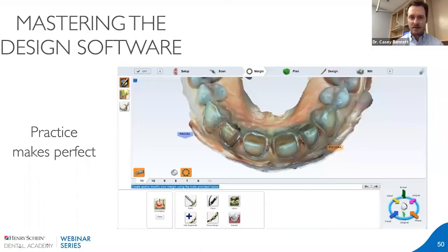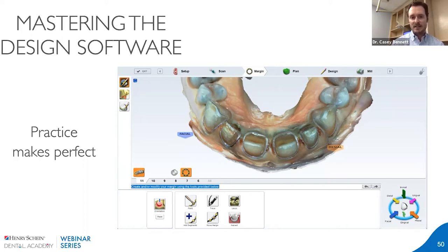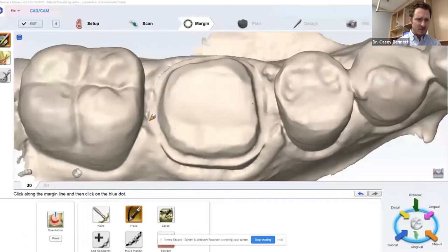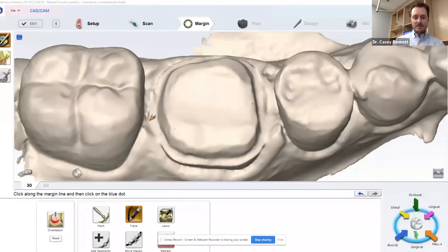Now that we're masters of scanning, let's move into the design aspect, because a lot of times dentists are worried about manipulating CAD software — they've never used it before, they're worried it will take too long to design crowns. Practice does make perfect. You can prep a tooth on a model and practice to get your speed up — it'll happen faster than you think. Here's an example of me designing a crown in real time — I think it takes about six minutes. First, I put it into color view mode and it defaults to trace, where I click along where my finish line should be — where the crown margin is.